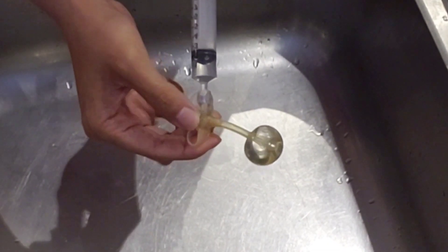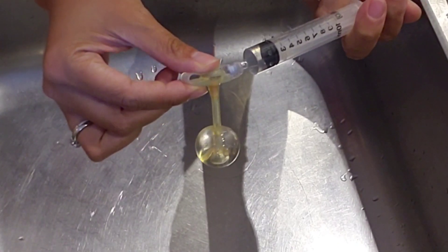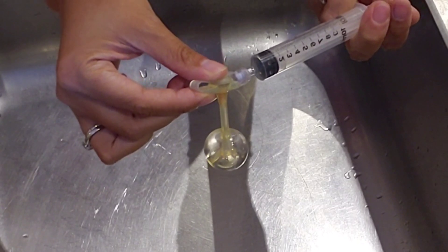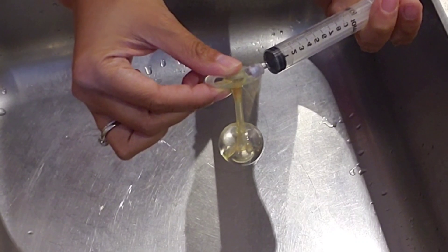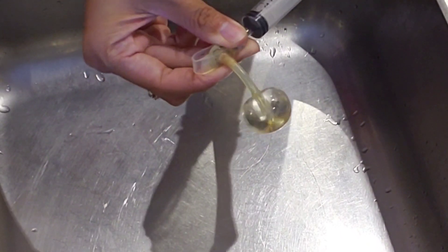I bet it can take more than ten — I bet it's eleven. It's at eight. Look at it, whoa, it's big. Nine... ten. Oh my goodness, it's big. Is that ten? It's so full. I don't really want to touch it because it might explode.